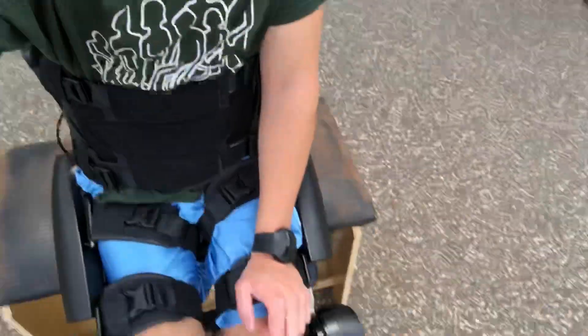I'm all strapped in and I'm ready to go. I'm ready to stand up with the crutches and go for a nice walk. We have some nice overcast so it's not too hot, which is pleasant because it's a workout when I'm in the exoskeleton — I'm using a lot of my shoulders and my upper body, and I'm using my core to balance and help shift my legs from side to side.